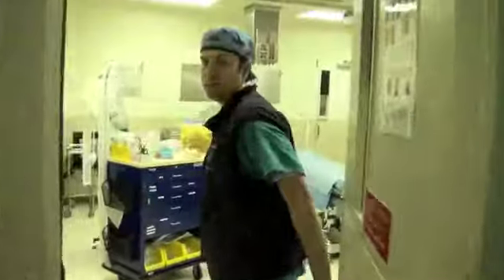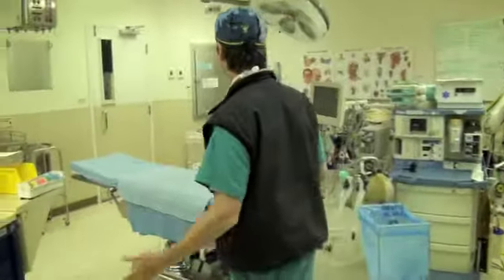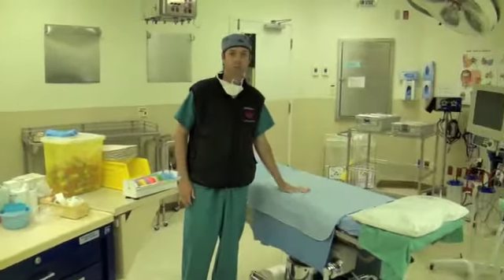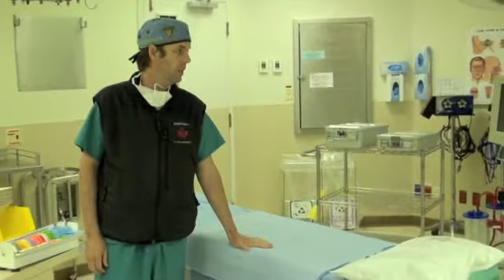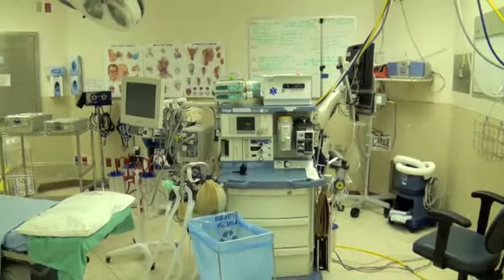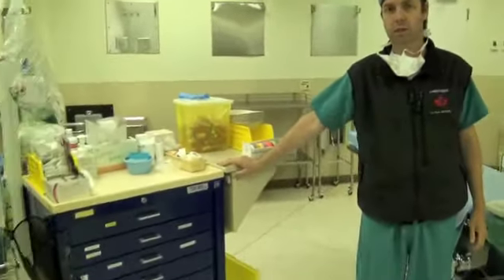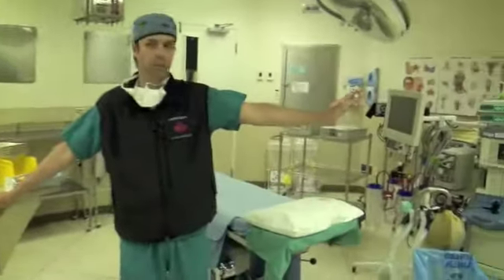Some of you will already be familiar with the operating room environment, some of you won't. So for those that aren't, we'll just have a quick orientation to what's in here. This is essentially what most operating rooms look like. Of course, centrally located, you've got the operating room bed on which the patient is placed. There's usually an area in which anesthesia takes care of its business, and you've got an anesthetic machine. For the sake of this video, we have moved the anesthetic cart into a central location so we can go over it. This cart is usually found next to the anesthetic machine.